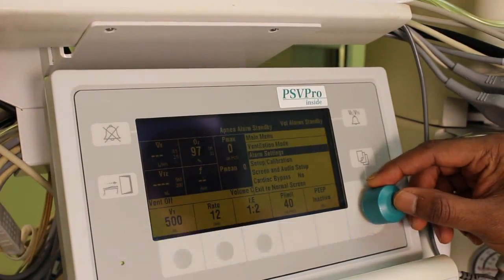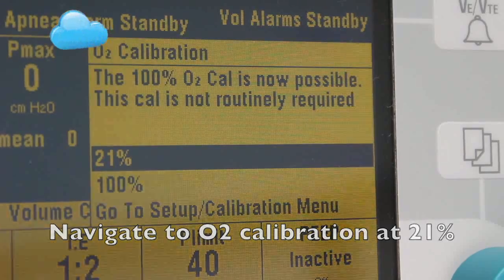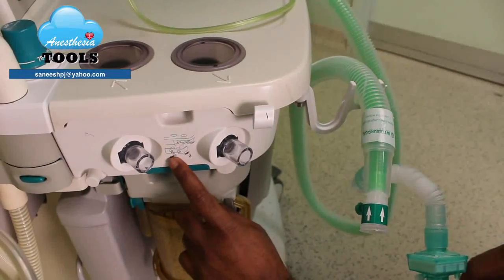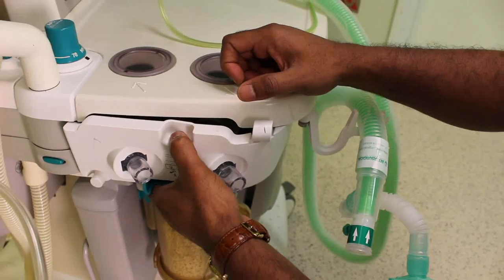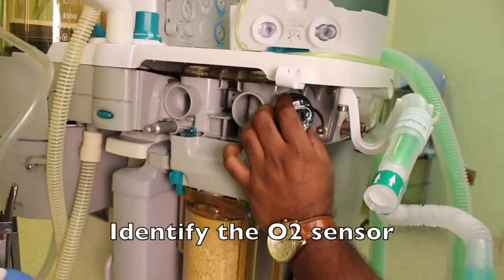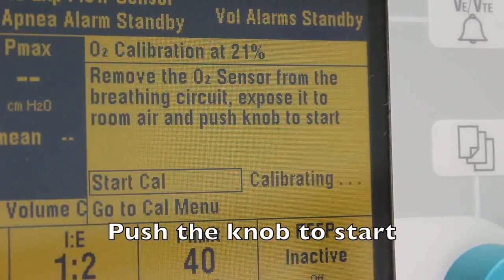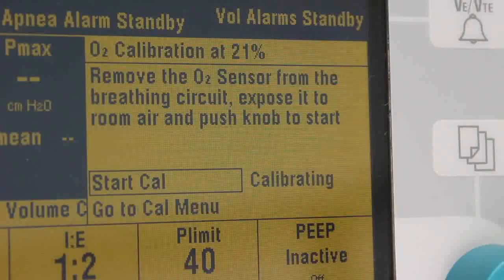The next step is to calibrate the oxygen sensor. Navigate using the menu bar to oxygen calibration at 21%. Remove the breathing circuit and open the panel as per the manufacturer's instructions. Identify the oxygen sensor, remove it by rotating counterclockwise, and expose the sensor to room air. Push the knob to start calibrating. It takes a while to complete the calibration.